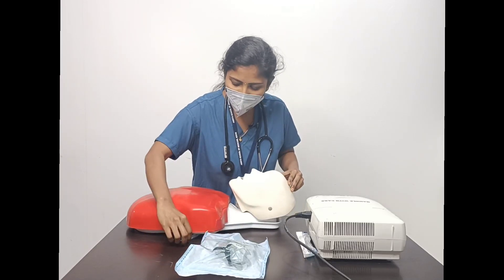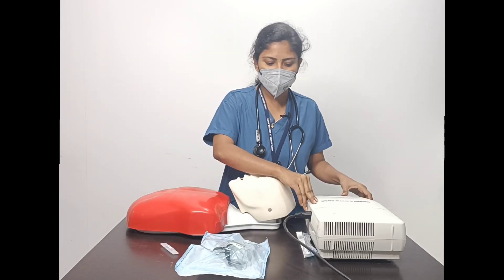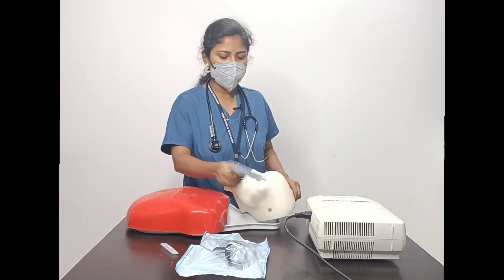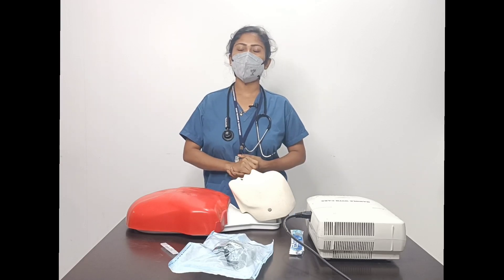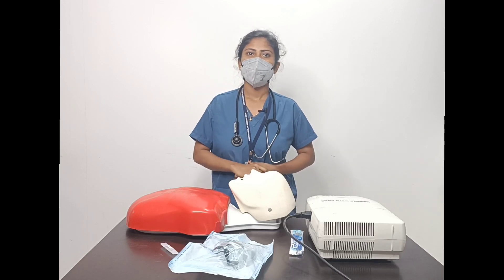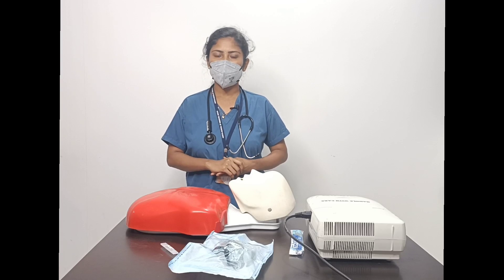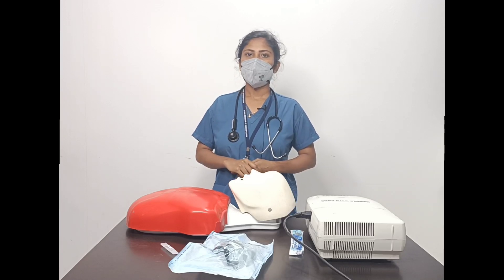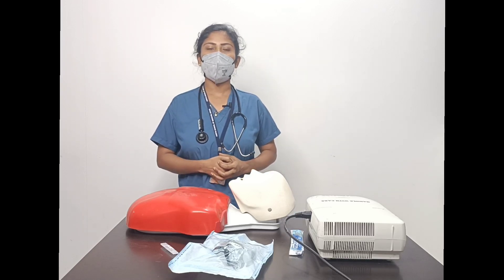The equipment needed for nebulization includes: a nebulization mask, the medicine prescribed by the doctor, the nebulization machine, and a syringe. Before giving any medication to a patient, we must confirm the five rights: the right patient, the right medicine, the right time, the right dose, and the right route.